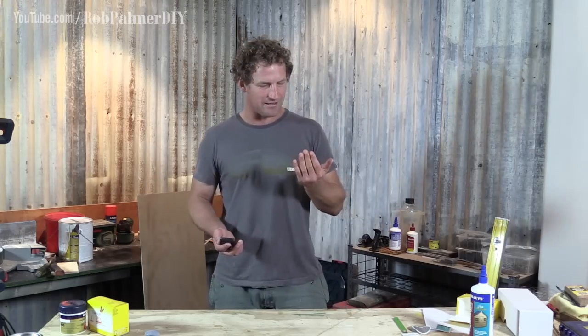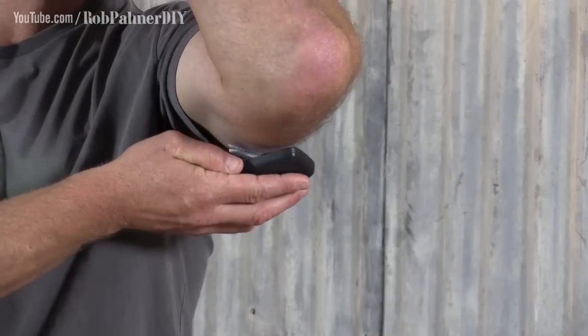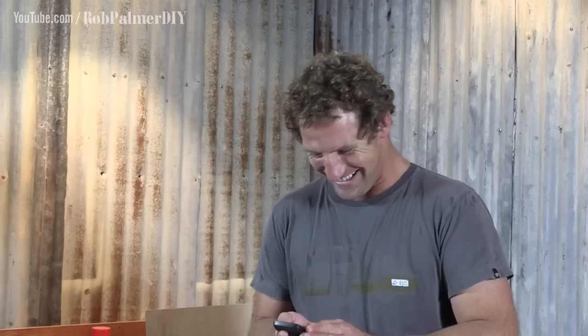Look at my fingers — they're relaxed already. Hello fellas, no more stabbing you in the top of the head. Anyway, that's the sensor. It's on. I'll let you know how it goes in a week or two. I'm dead set as excited as a six-year-old on Christmas Eve. This is nuts.